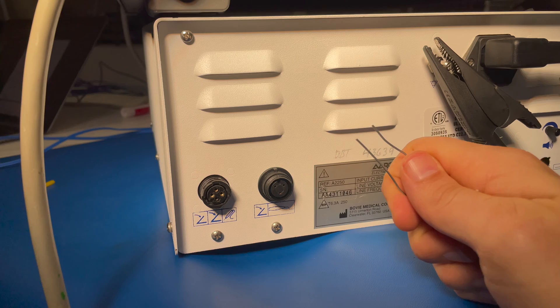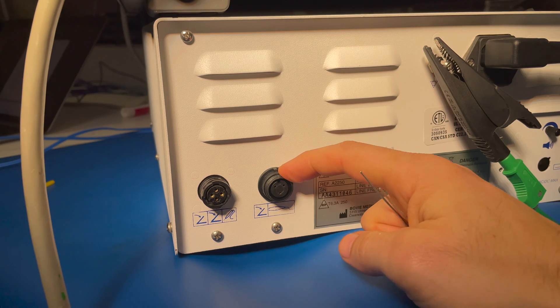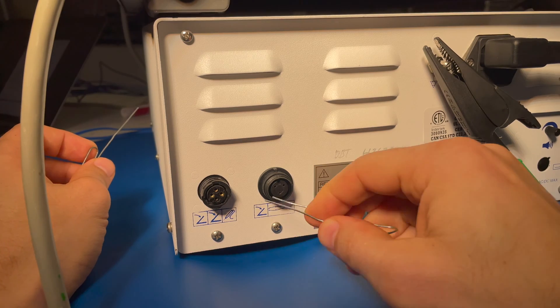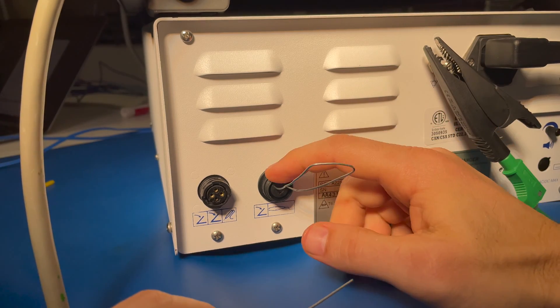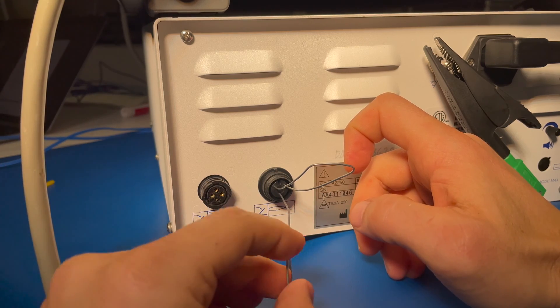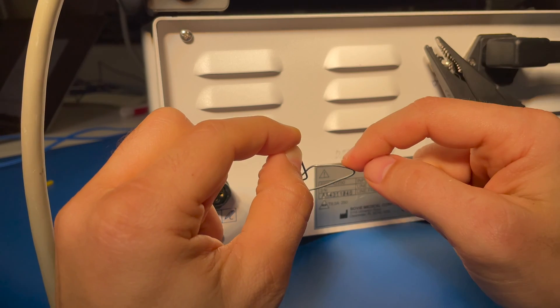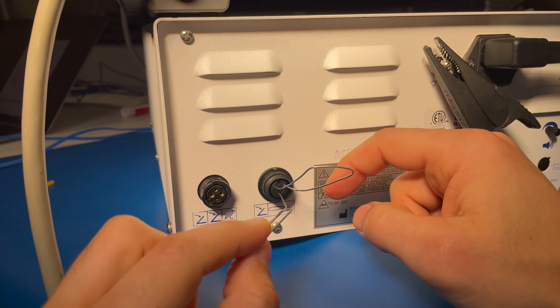I have Justin over at Better Biomed to thank for this trick — he showed me this in one of his videos. If you don't have your foot pedal to activate the foot switch, you can actually use a jumper. Depending on the model of ESU, you jumper it a little bit differently, but for this one, to jump the bipolar, you need to jump both of these ports here and then put another jumper in here. As soon as you touch the top circuit to the bottom clip, you're going to activate the bipolar. This is low voltage, so you don't have to worry. As long as there's contact between all three of those ports, you're going to activate bipolar mode.